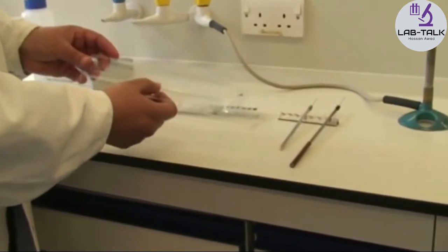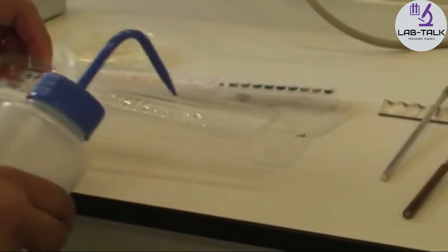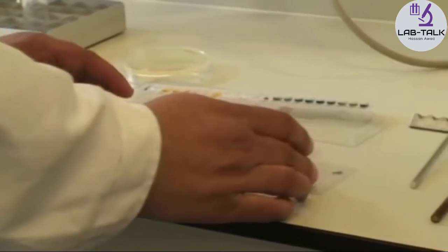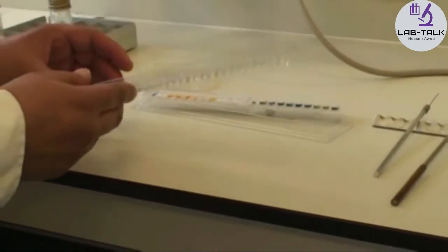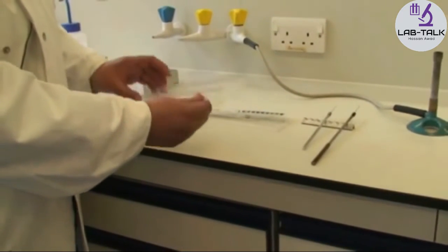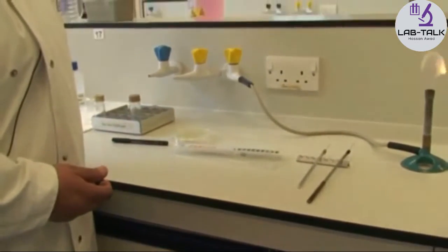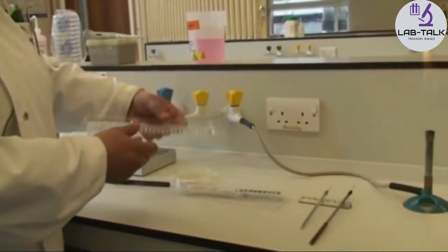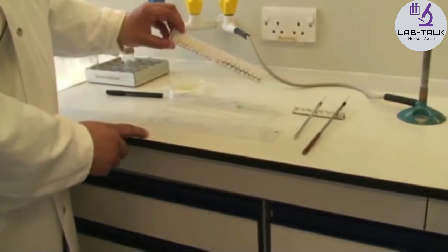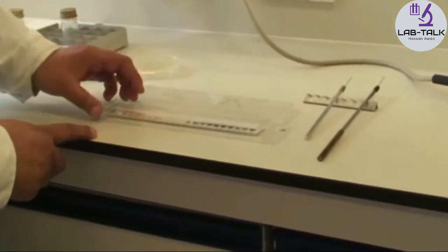You can see all these corrugated areas — fill those with water. If there's any excess, move it all up and down until you fill most of the wells, then get rid of any excess in a pot. This provides a humidified chamber for your API strip, which just sits in there.